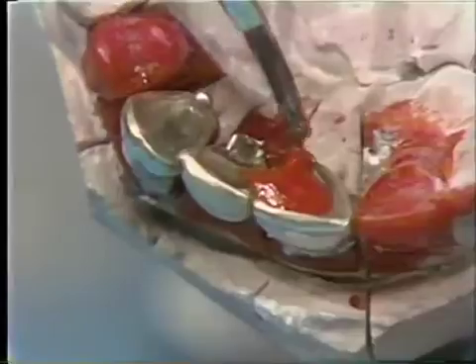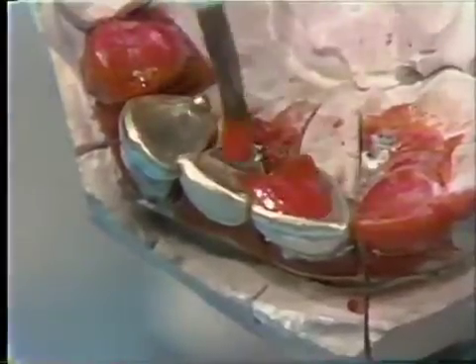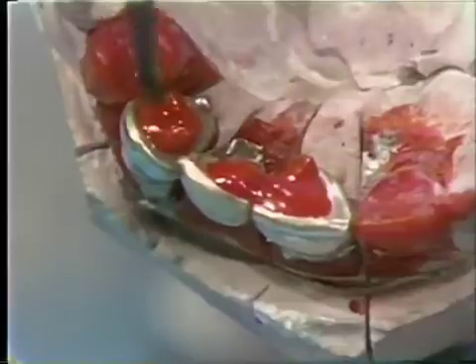We will flow the Duralay around the knock-off lug. You will note the lingual area is rather minimal, and you can see the importance of the knock-off lug in holding this Duralay together.